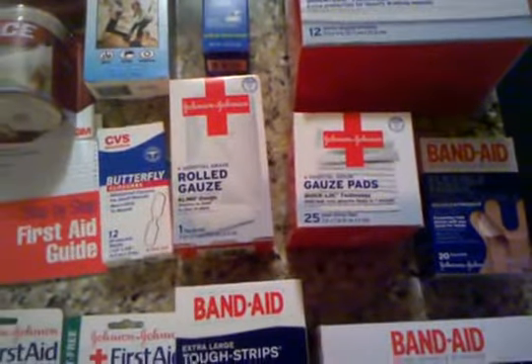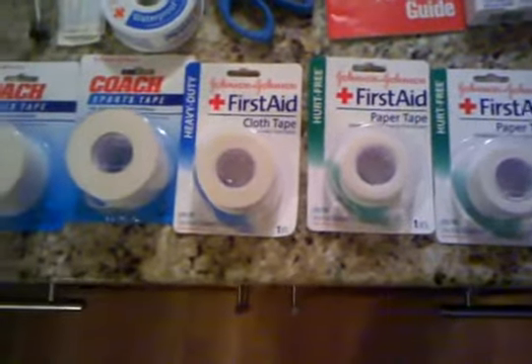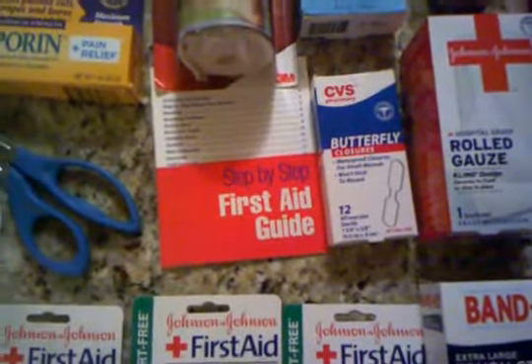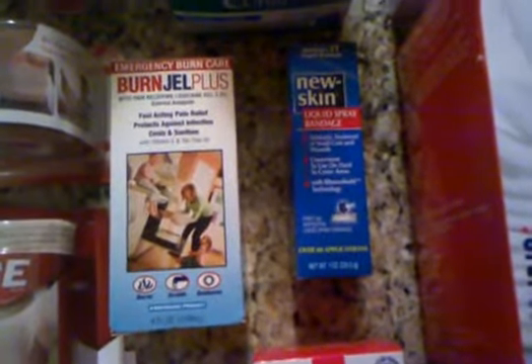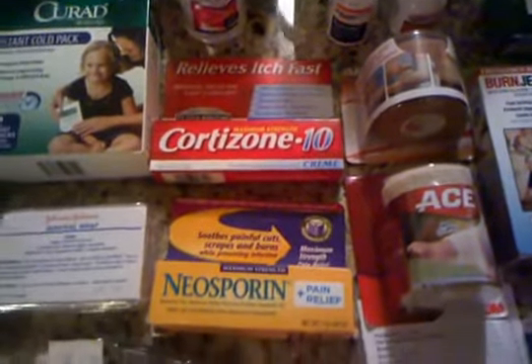I'll probably add to the gauze too. There's an assortment of tape — first aid tape, a couple of paper tapes, cloth tape, some sports tape, and some weatherproof tape. Don't forget your bandage scissors — got those at the drugstore for about five dollars. There's a little first aid guide that came with another first aid kit. A couple of ACE bandages, a two-inch and a three-inch. Some burn gel in case of burns, a liquid spray bandage, some alcohol swabs, plenty of rubbing alcohol, ibuprofen, acetaminophen, cortisone cream, and Neosporin.